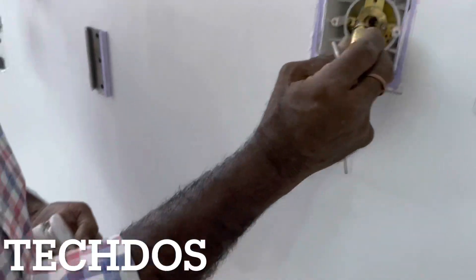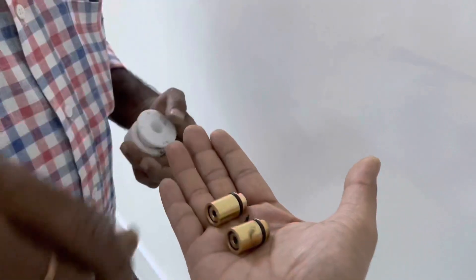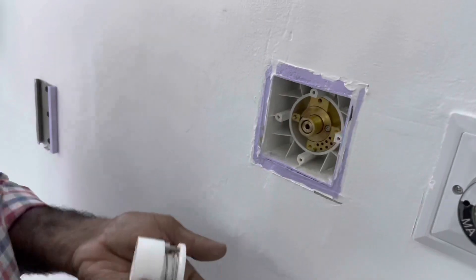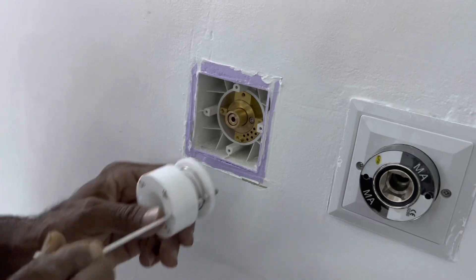Remove the cartridge to change the o-ring, or otherwise change the cartridge completely. Now we are going to put the new cartridge to fix the outlet properly so it can be used without a leak.